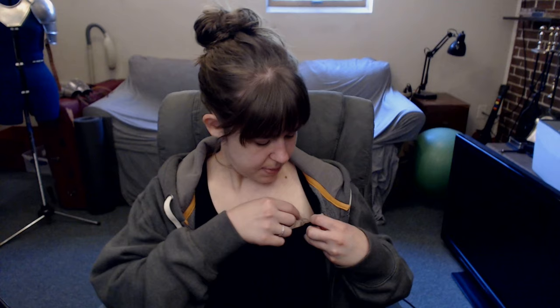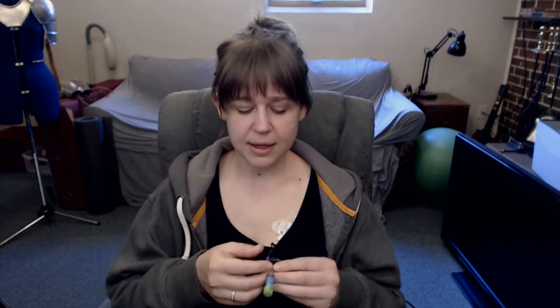Hello everybody, welcome back to my basement. I get my line out tomorrow, so before I did I wanted to take a minute and show you guys the line and the different parts that make it up, and let you see kind of what I've lived with for the last nine months. The line itself I keep curled up and tucked away right there — and ta-da, this is the line.